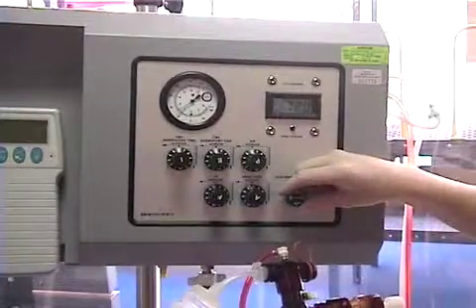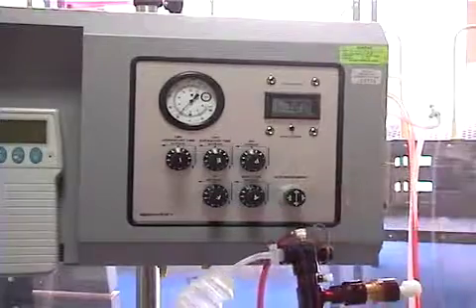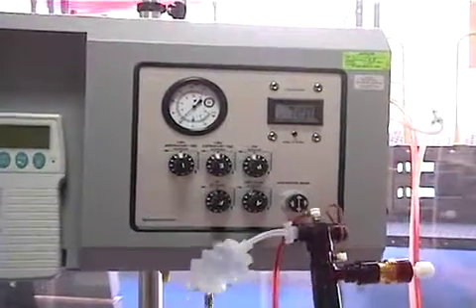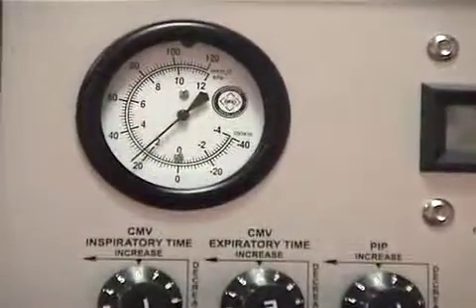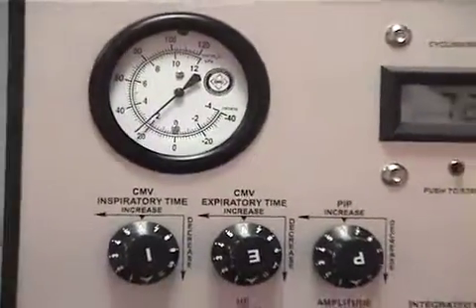An integrated mean toggle switch will show the amount of mean airway pressure. This toggle switch has no effect on mean airway pressure directly, only to freeze it on the manometer to measure it.